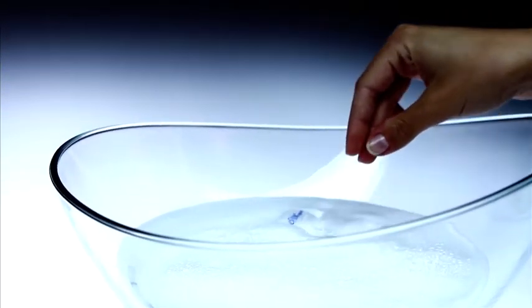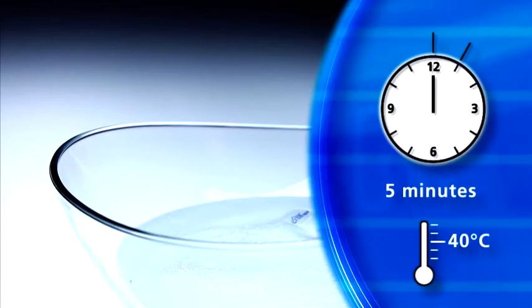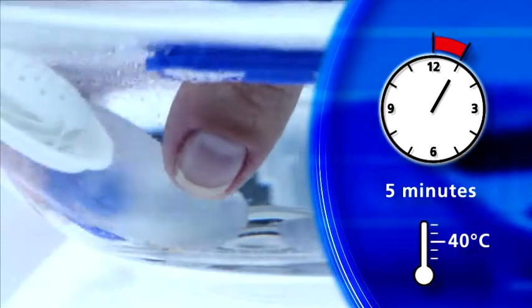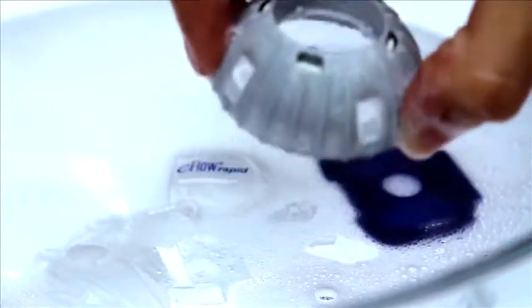For cleaning, place all components of the nebulizer handset and the aerosol head in warm tap water at about 40 degrees Celsius with a little dishwashing liquid for five minutes. Afterwards, rinse all parts thoroughly in warm running tap water.